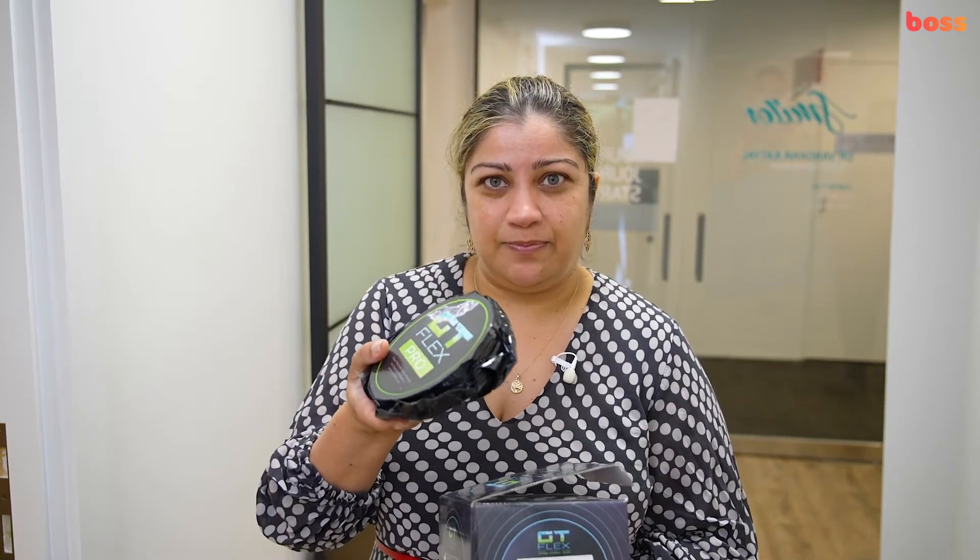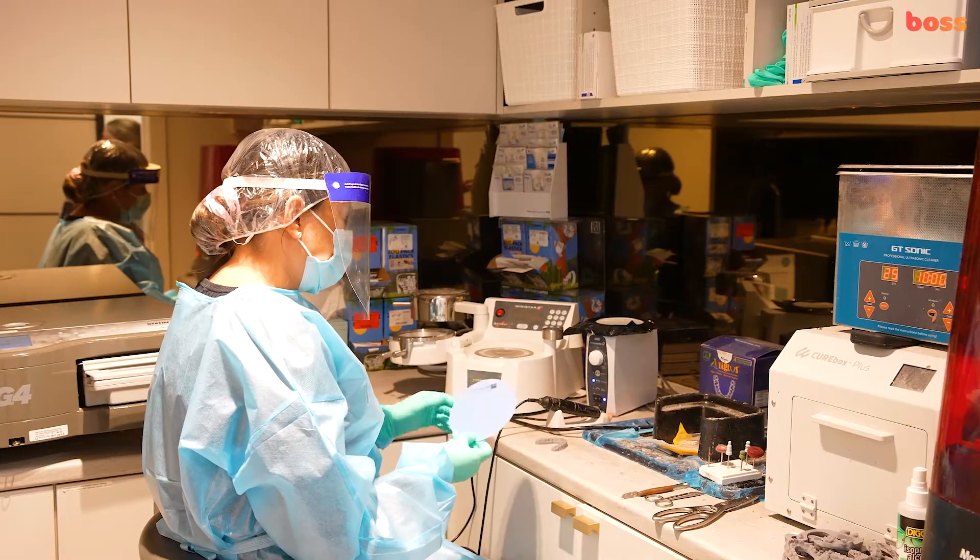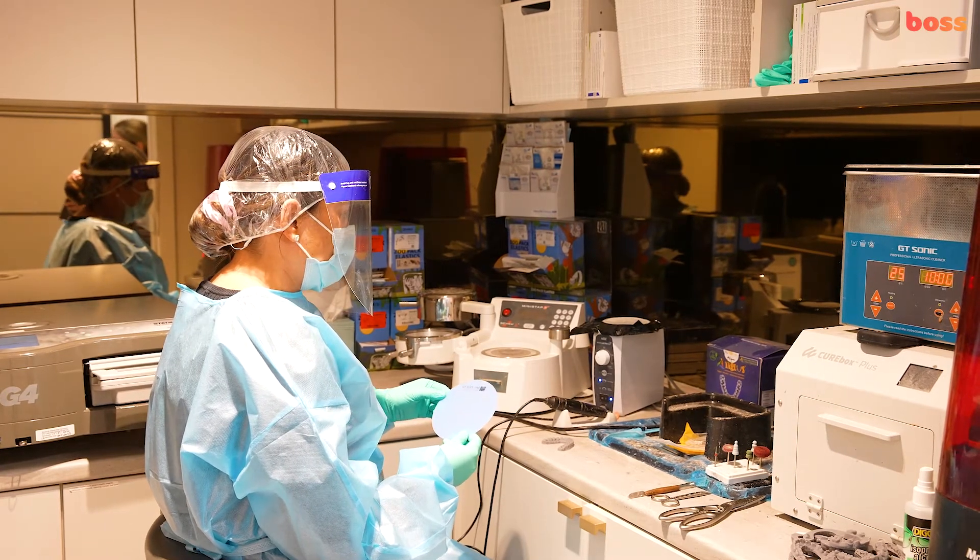We're going to use this GT Flex Pro 1mm in a machine called Ministar, and Maria here, our senior dental technician and nurse, is going to show you how we're going to fabricate this, so watch on.